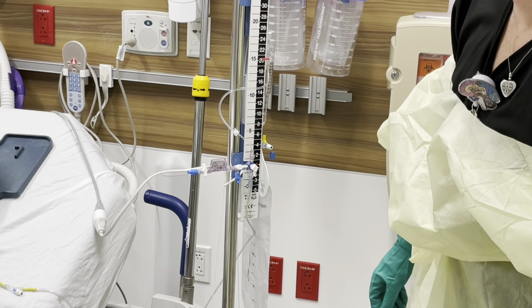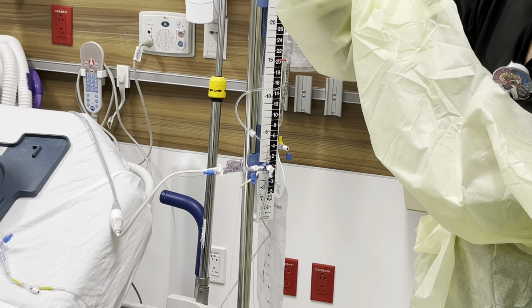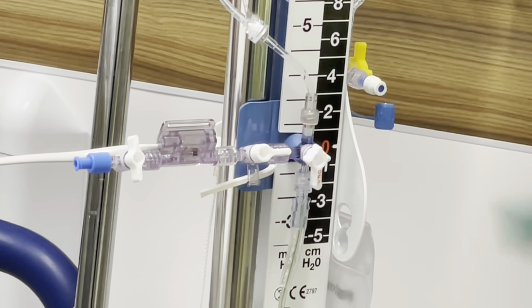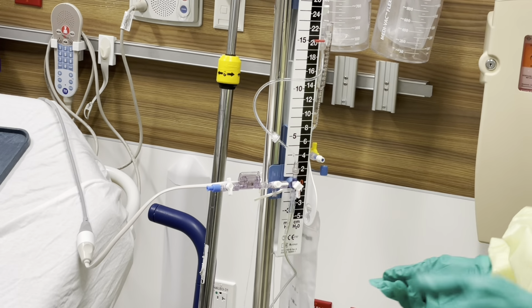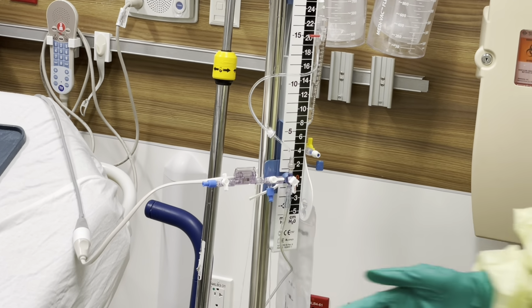You're going to end up seeing your ICP come up that way. Okay? You're going to zero. So the way you're going to do that is you're going to take this little guy off that way. Again, you're going to be sterile. And you're going to hit the zero button on there, and it's going to zero to atmospheric pressure. You don't need to worry about your drain at all at this point. Anything connecting with the patient or the drain, you're really just zeroing this transducer. Once you hear your second beep, see your zero show up, you're going to put this cap back on. At this point, now you're going to turn it down. So that's ready to transduce now. Your transducer is all ready.